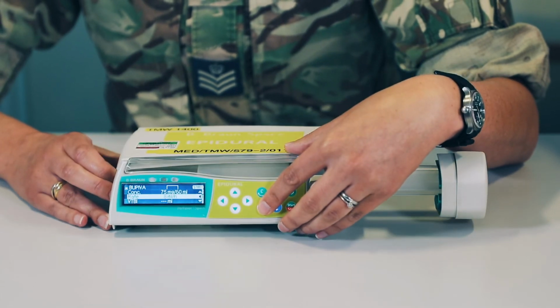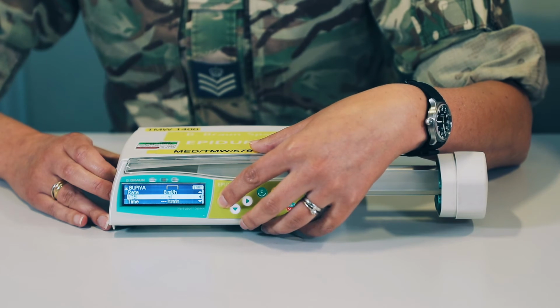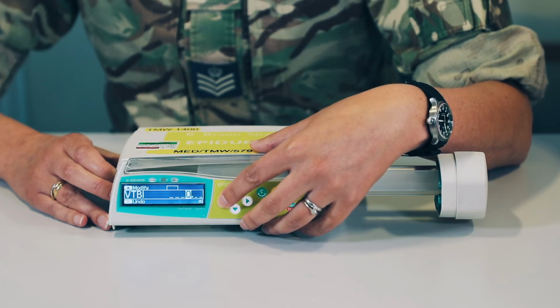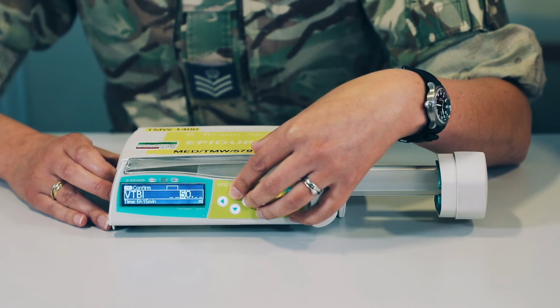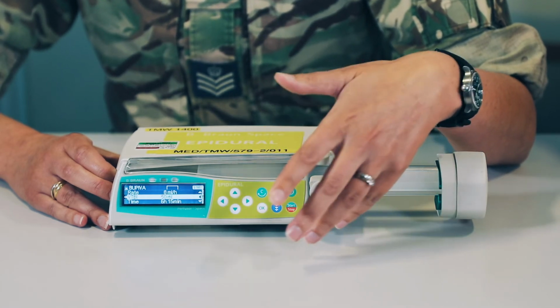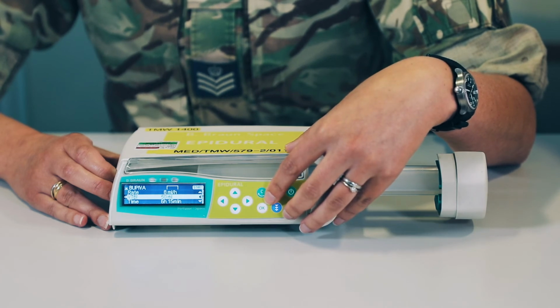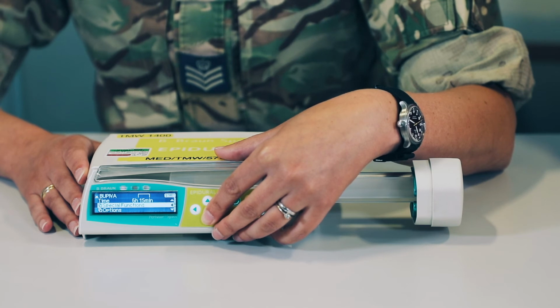and once you've selected your infusion rate, press OK. It'll take you back to the menu where we would recommend filling in the rest of the information, such as the volume to be infused. Obviously this one is at 50. And then you'll see that all of the information you require is set up and ready to go. And then we'll move down to our special functions.